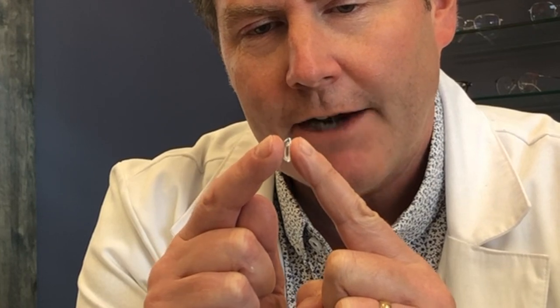So now you know how to hold your lids and the proper positioning of the contact lens on your finger. The next thing is how to get it onto your eye. Bring the lens straight toward the cornea — be careful not to fold the lens back, and make sure you don't hit your upper or lower lids. When you touch it to the cornea, the contact lens is going to adhere and sit right on the cornea. Sometimes the lens won't come off your finger because it will want to stick to whatever tissue is most moist.